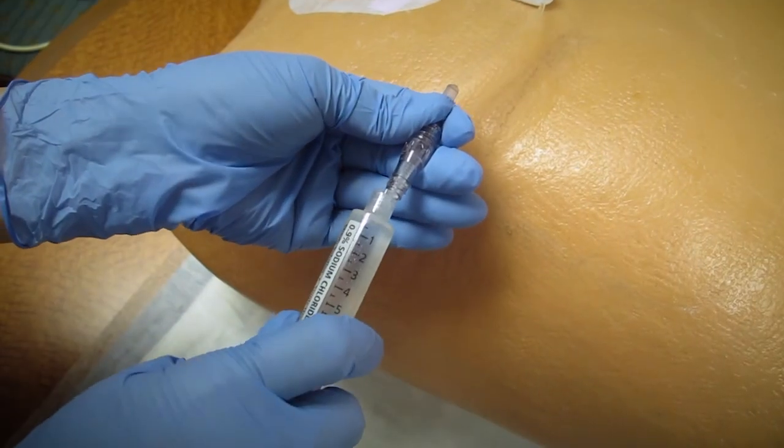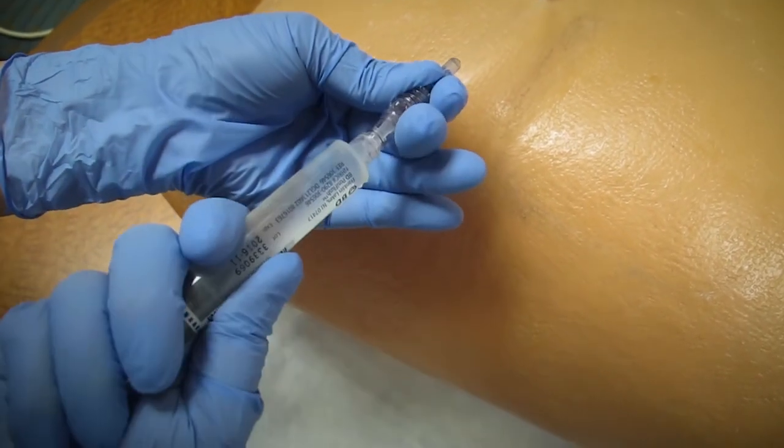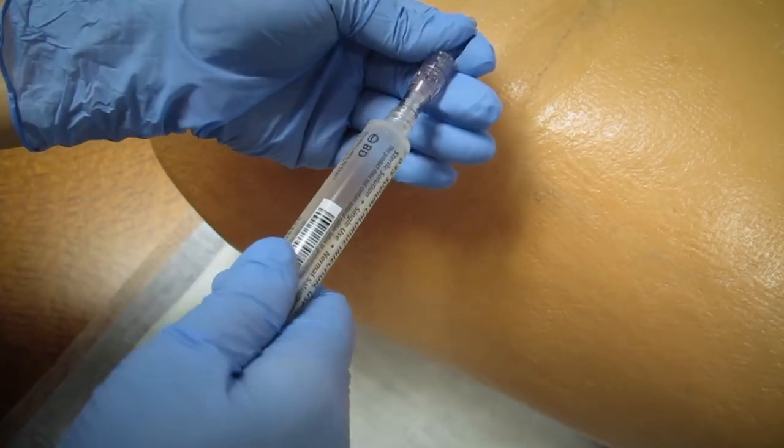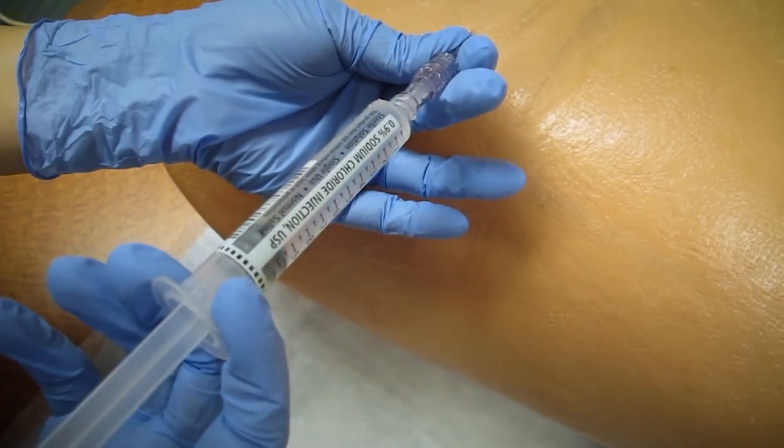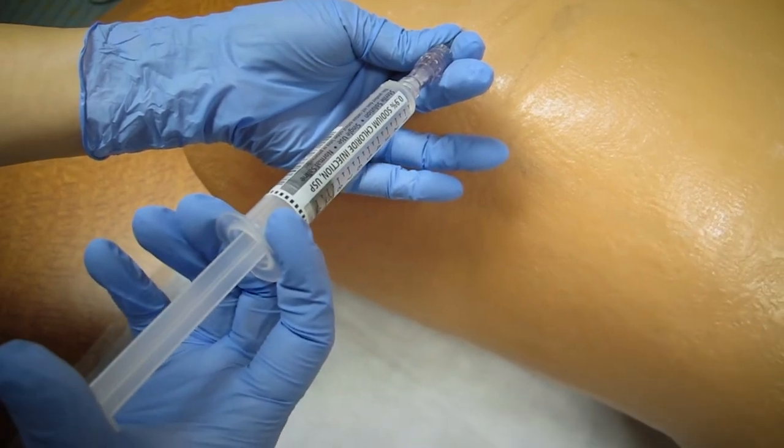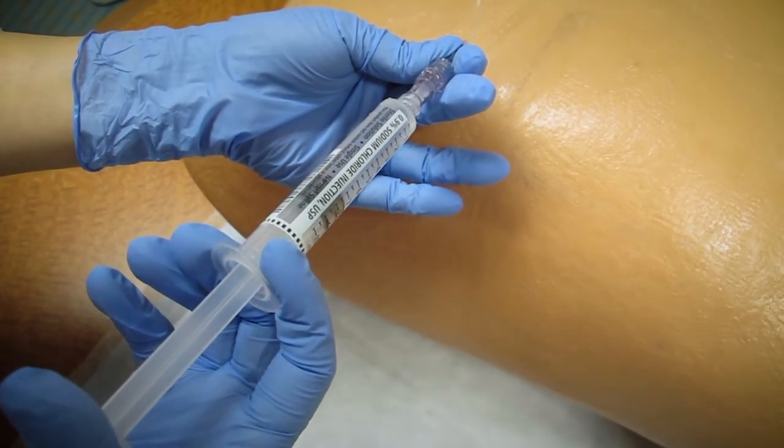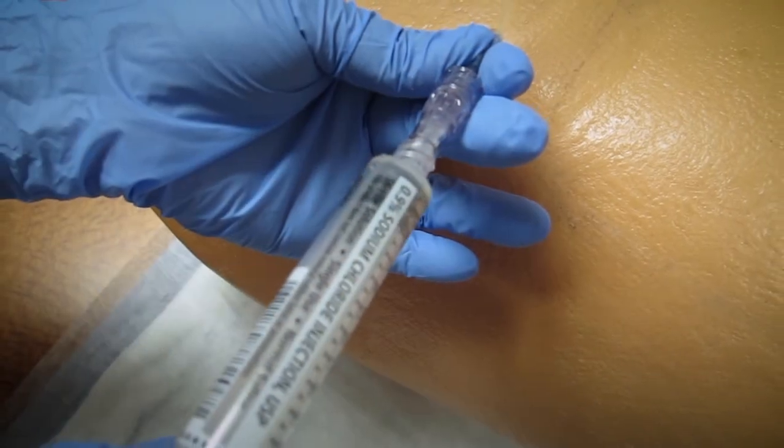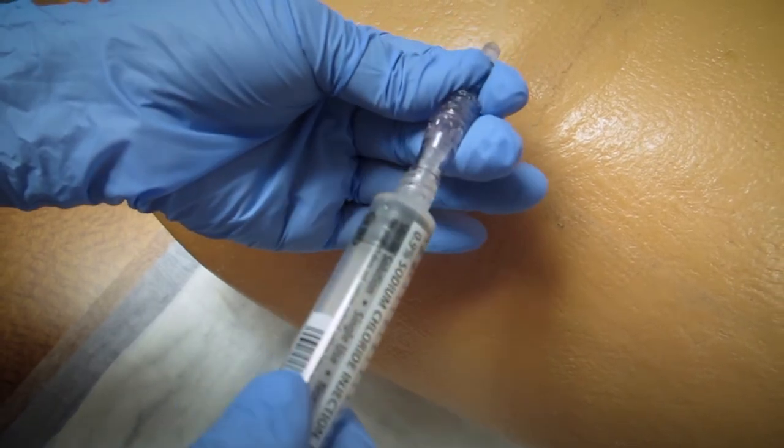The remaining steps are shown using a patient mannequin. You connect with a twisting motion to lock the syringe, then push the plunger sending the fluid into the line. When you are done, untwist and throw the syringe away.